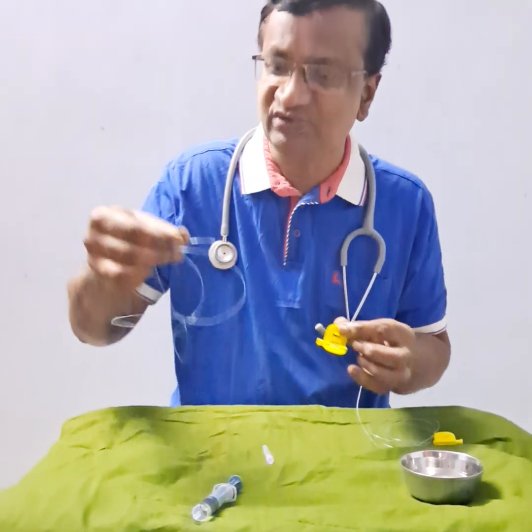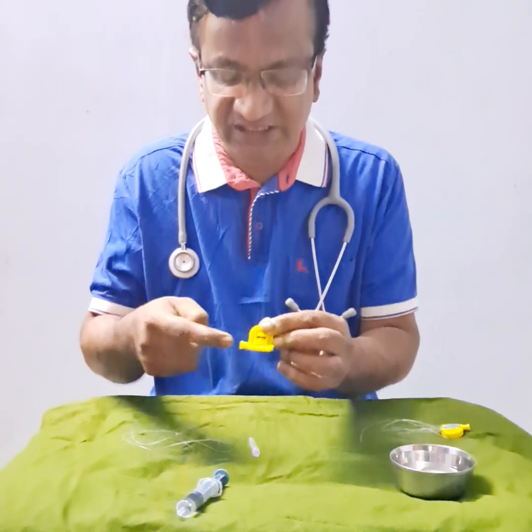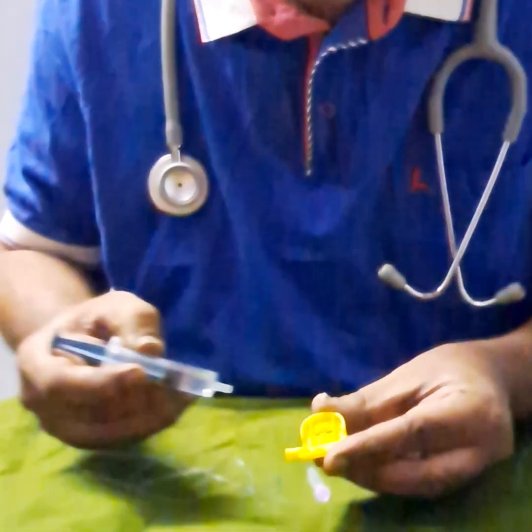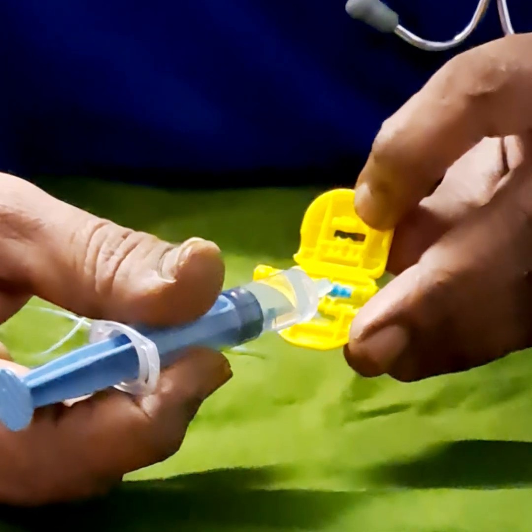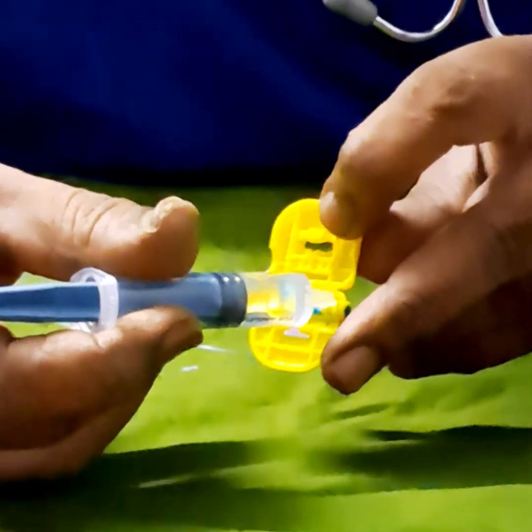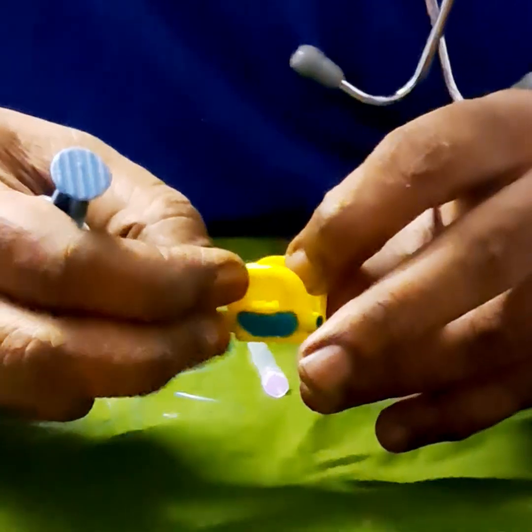You can see this is an 18 gauge epidural catheter and this is a 16 gauge catheter. This is an adapter. The 16 gauge catheter is unlikely to go inside this adapter. This blue part is made up of silicone. You can see there are 4 ridges in this silicone, and it is fused here where we can insert. There are 3 holes here and this will close like this.